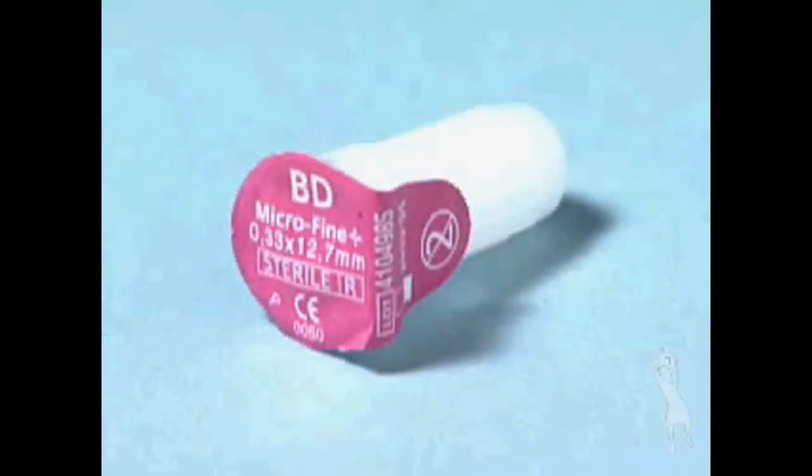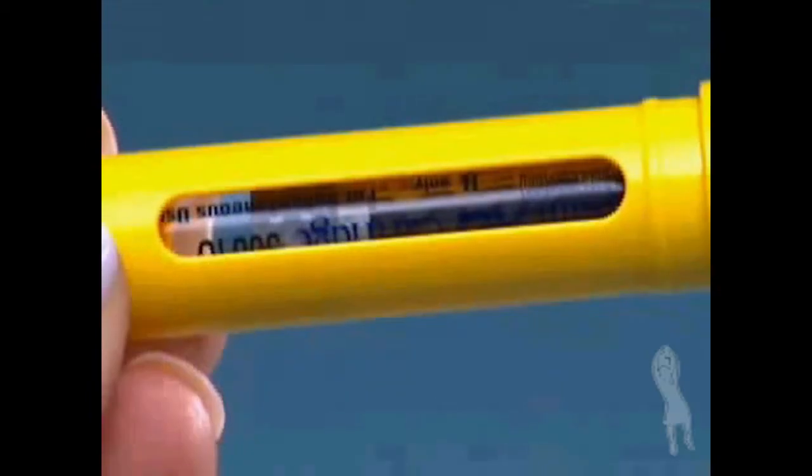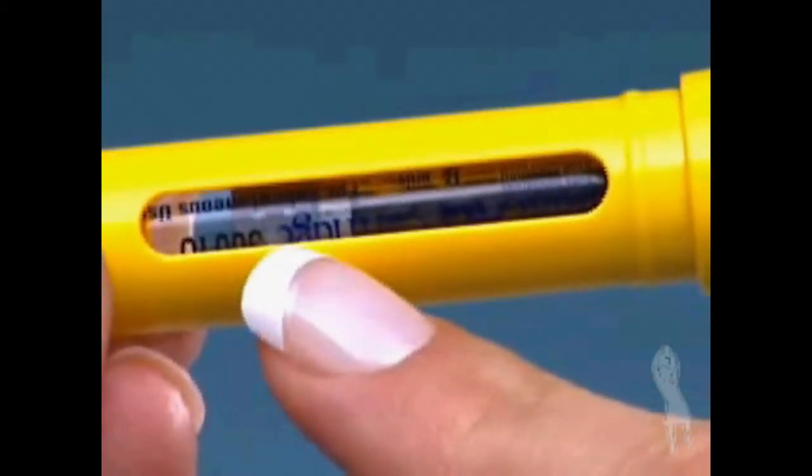You must use a new BD Microfine Pen Needle for each injection. Never reuse a needle. Confirm that there is a Follistim AQ cartridge in the cartridge holder.